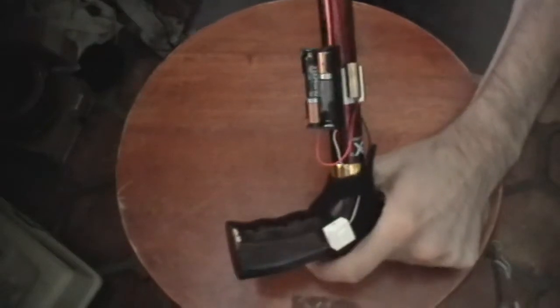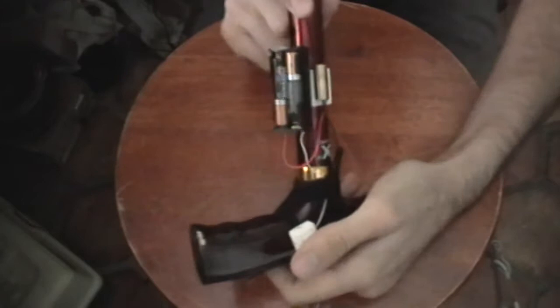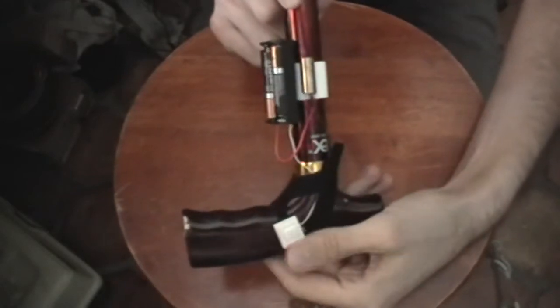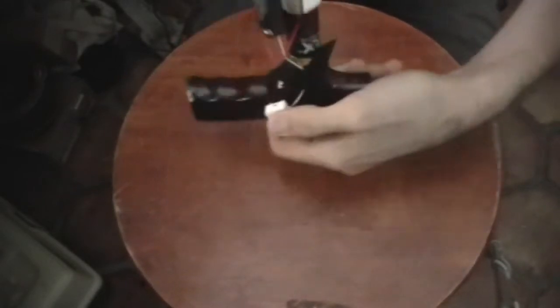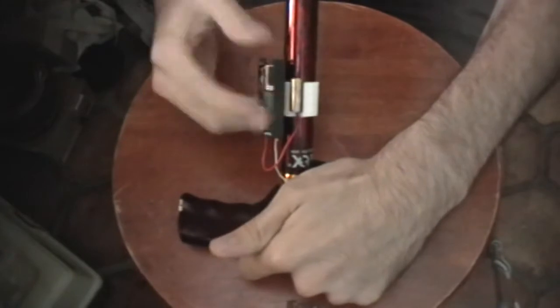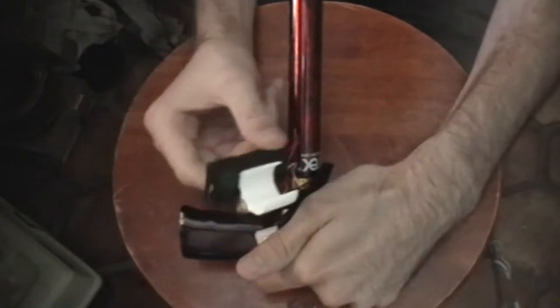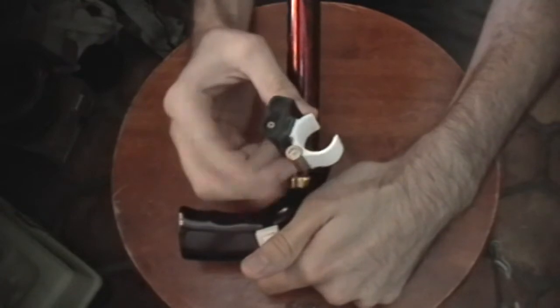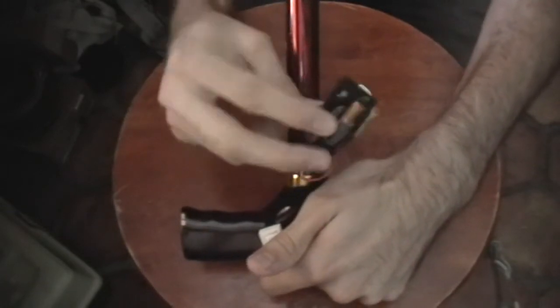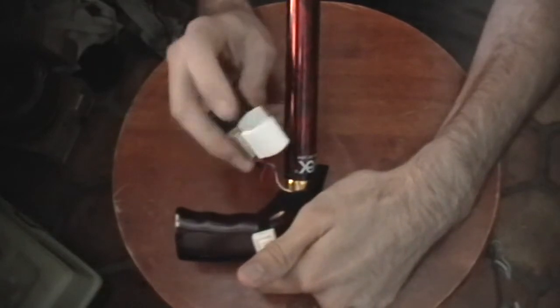I have the button on top, and here we have the laser cane fully assembled. I have the button casing up here — when you push it, the laser turns on. And here we have the clip-on ring, which goes on the cane itself with the laser and battery pack epoxied to the 3D print.